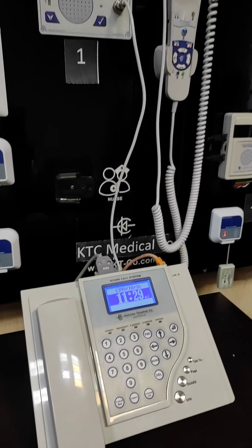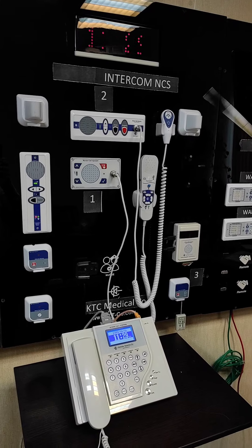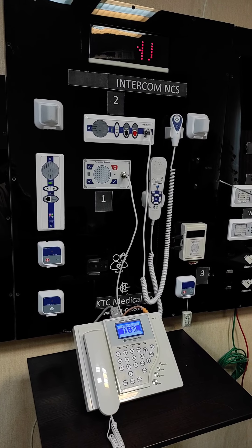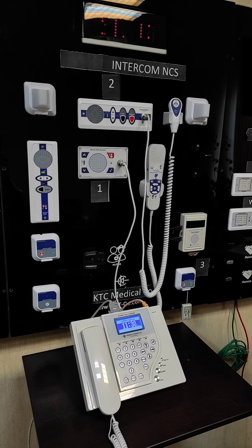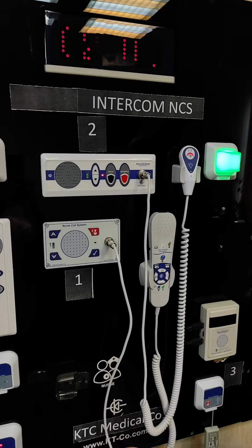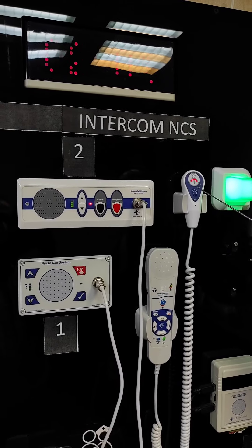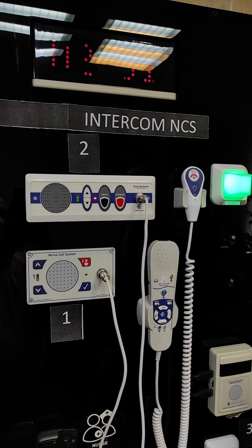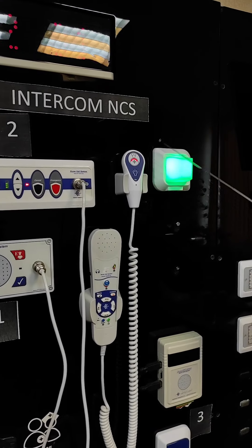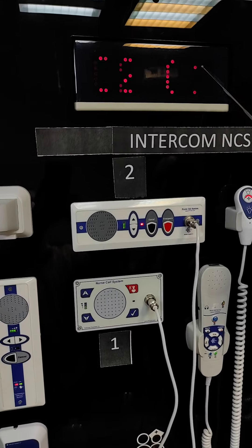To show how this nurse call system functions, we will initiate a normal call first. We go to bed number two in room number one. The patient presses the call button — a bright red illumination is activated for reassurance that the call has been initiated, and the click of the button provides additional reassurance. As you see, the over-door corridor status light changes color to green, meaning there is a normal call. And the corridor display shows room number one, bed number two.